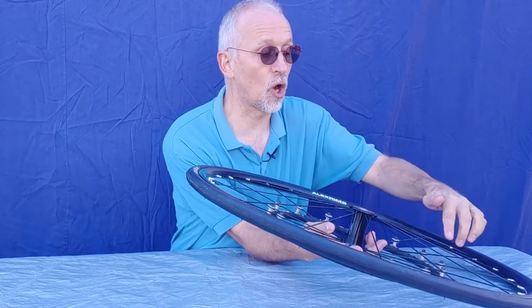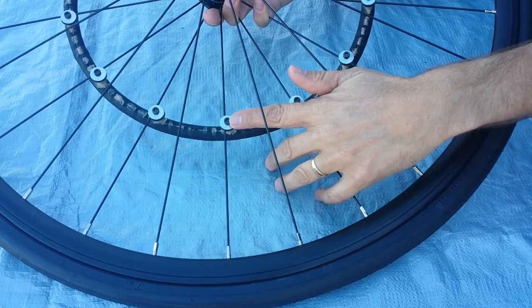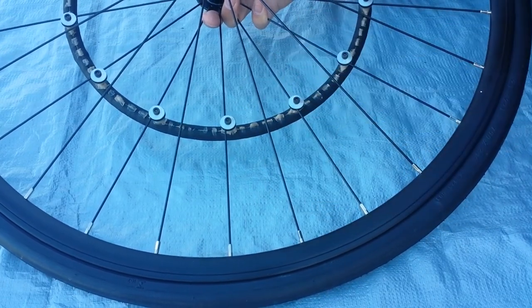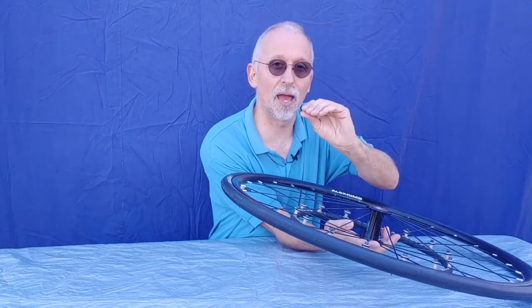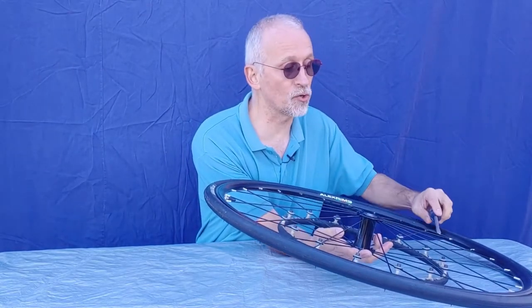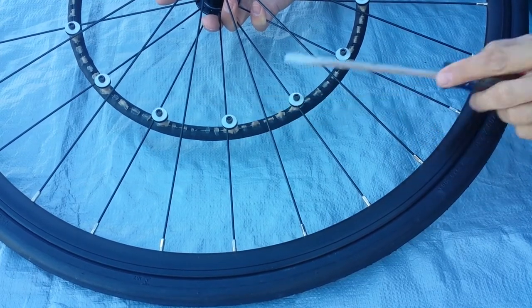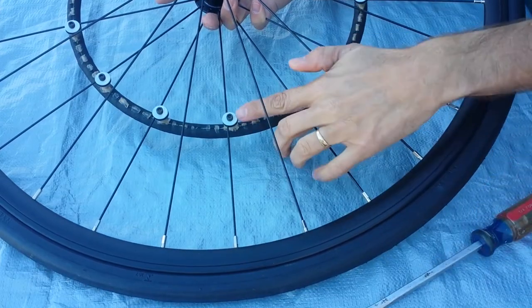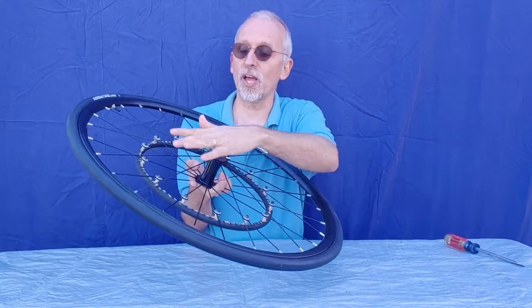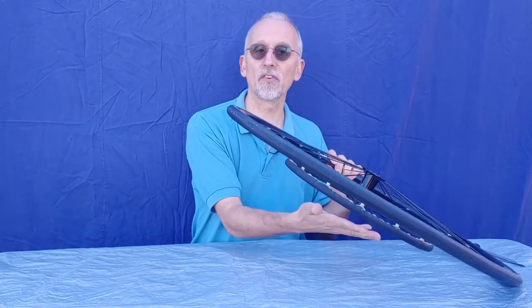I highly recommend that you don't take the bolts all the way off — just loosen them. If you have a drill, it's a little easier to work quicker. Once you have them loosened, you might find that the rubber has gripped together over time. A little dry rot may have gotten in there, making it difficult to separate the rubber washers. A trick is to use a flat blade screwdriver, insert it between the two rubber washers, give it a little twist and they'll pop apart. Once all the rubber washers are separated, you should be able to just rotate the hand rim and it will pop right off the spokes.